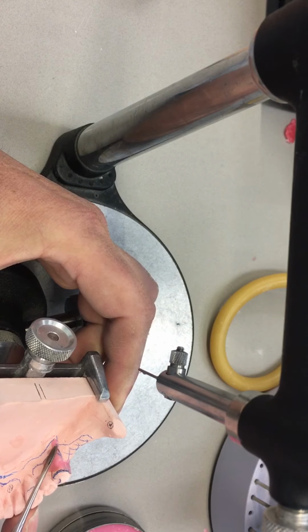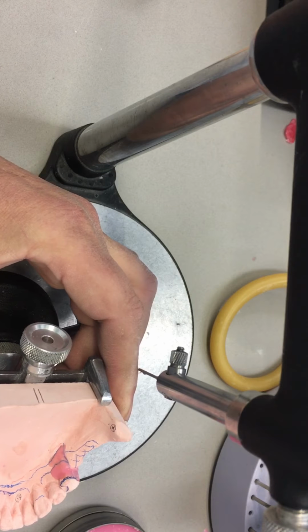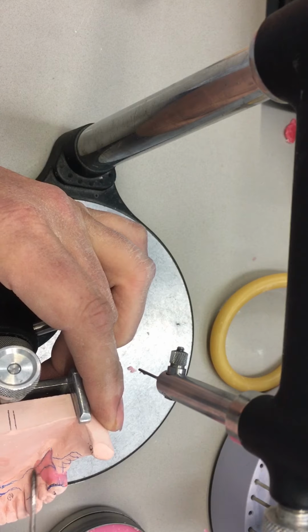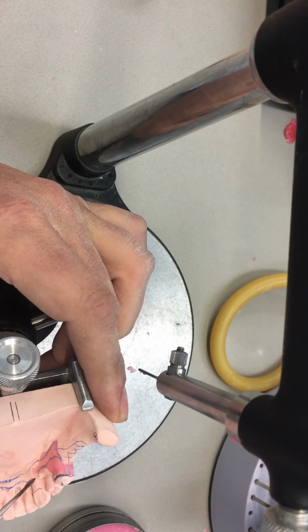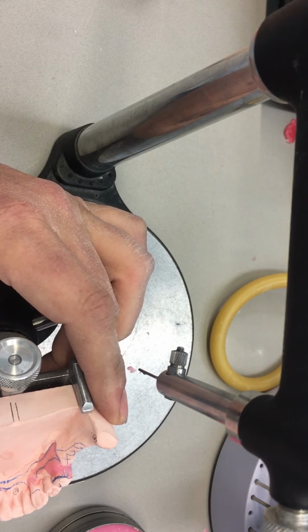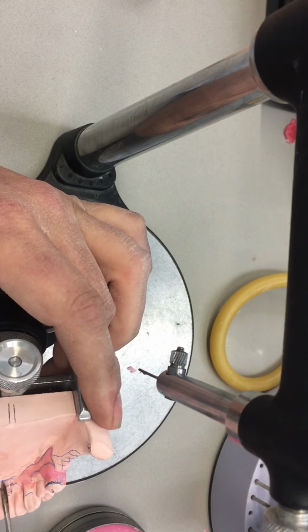I'm almost done here. And then once I finish, I'll repost the ledging of this model. And I think from the analog versus digital, the most advantageous is definitely at this stage for the digital. It's a lot quicker and more visual. And hopefully we'll be able to see that.